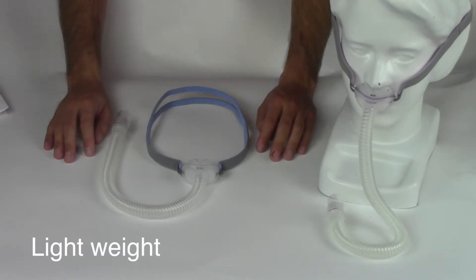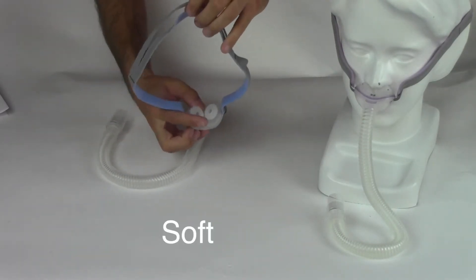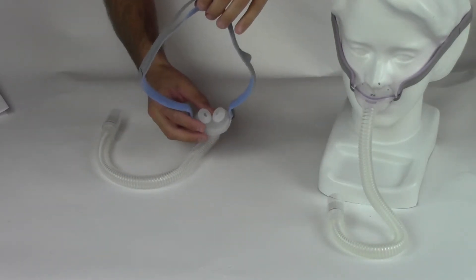This is an extremely lightweight mask, it weighs just a few ounces. It has a pair of very soft nasal cushions that are designed to sit just below your nose.